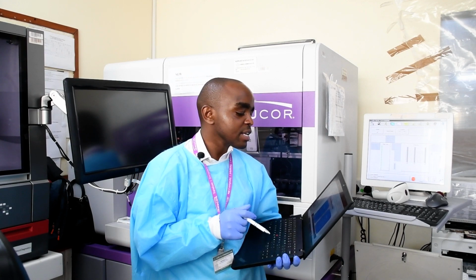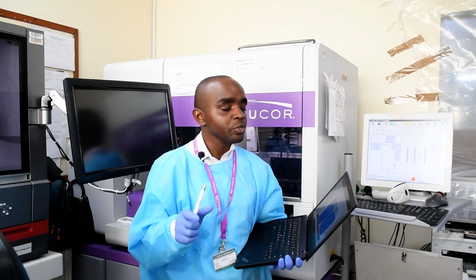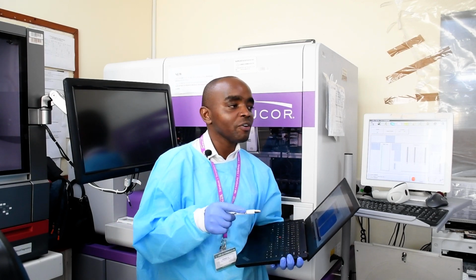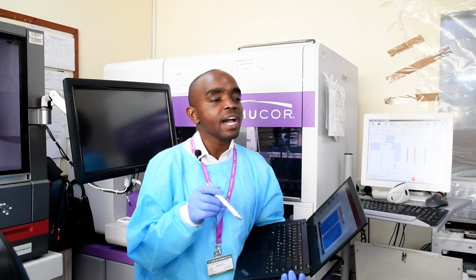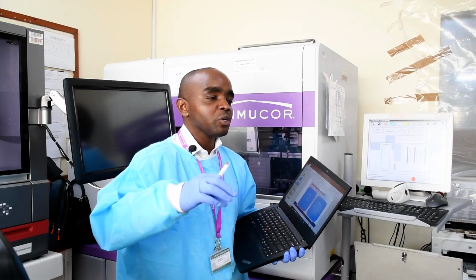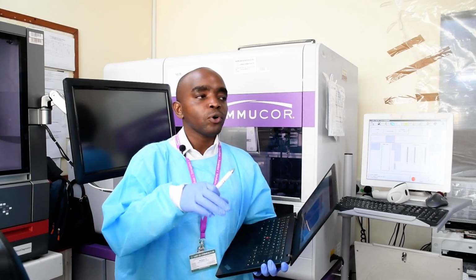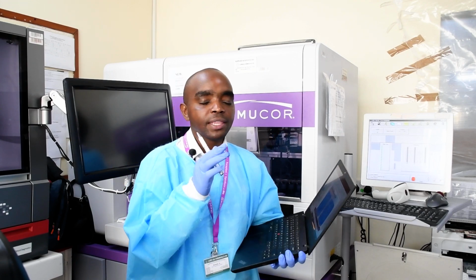For the IgG assays, you will have to have the reference cells A1, A2 and B, depending on whatever you are doing. Then you will have to have the Capture-R indicator cells, and then you are going to have Capture-Lis and Capture-R Select plates. The only thing is that because of the amount of dilution that this one does, this uses slightly more volume of the reagents than the ABO blood grouping.